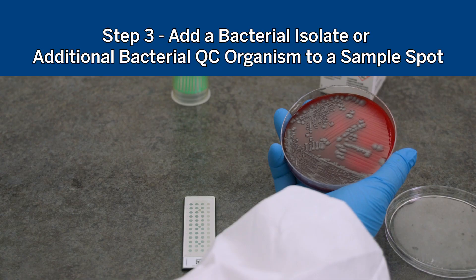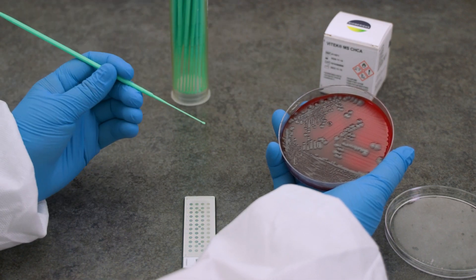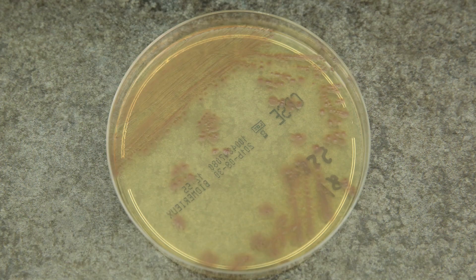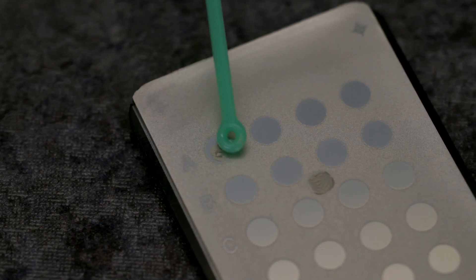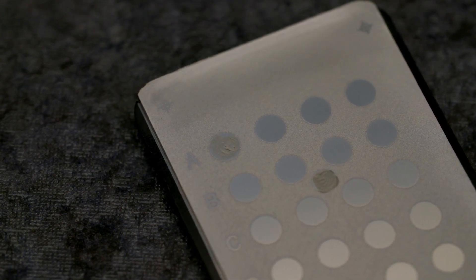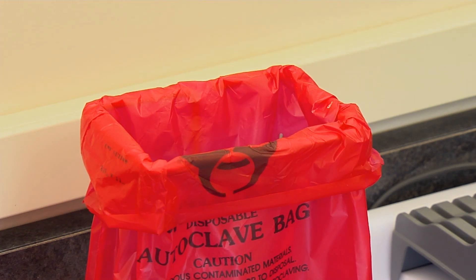Step 3: Add a bacterial isolate or additional bacterial QC organism to a sample spot. Using a 1 microliter loop, pick up part of a suitable colony from an 18 to 72 hour patient isolate grown on validated media. Colonies on agar plates may vary considerably in size, texture, or viscosity, so some judgment is required. It is important to avoid picking up agar along with the colony as this may lead to poor identification results. Apply the isolate to the center of the first available sample spot; dabbing 2 to 3 times works well. Flip the loop and smear the bacterial isolate in a thin, even layer. Good smear quality is essential — if the spot fails, the next spot is tested. Discard the used loop in an appropriate biohazard container.